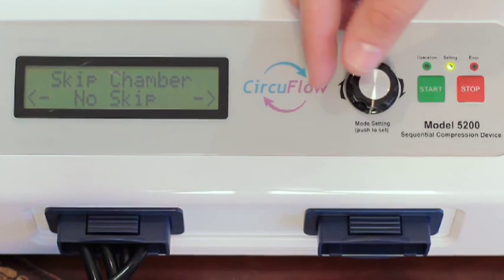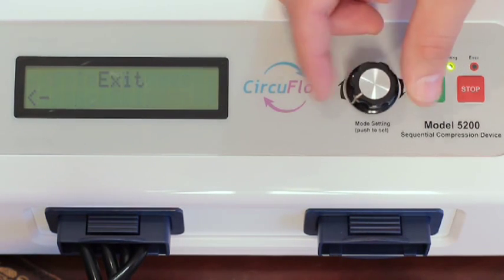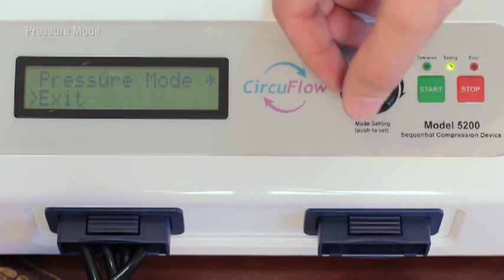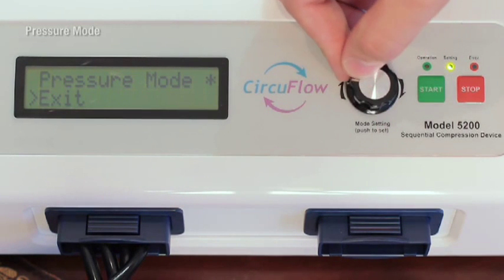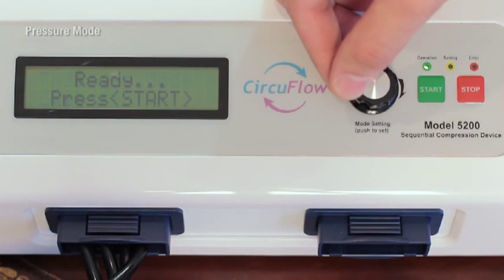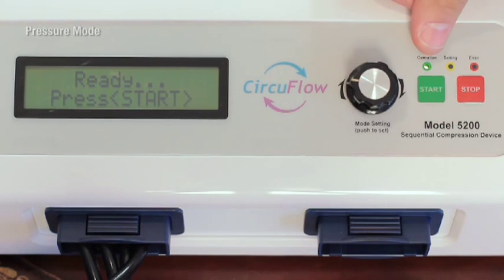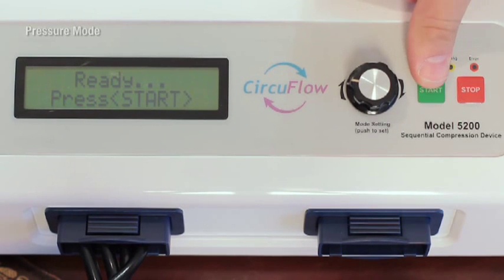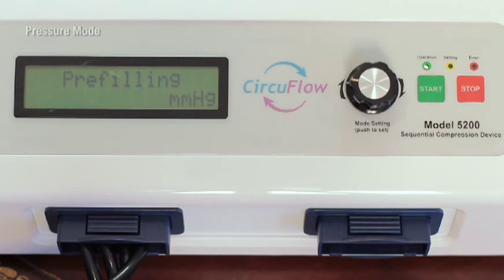To complete the setup, turn the shuttle knob to the right and select exit. Once in therapy mode settings, turn the shuttle knob to the right until you see exit and press to select. You will be taken to the ready press start display. Push the green start button to begin your custom treatment.